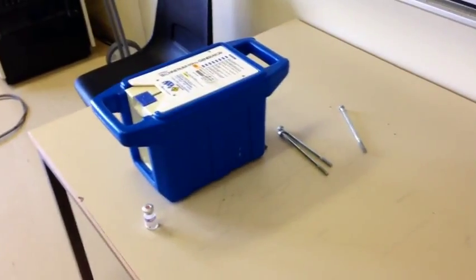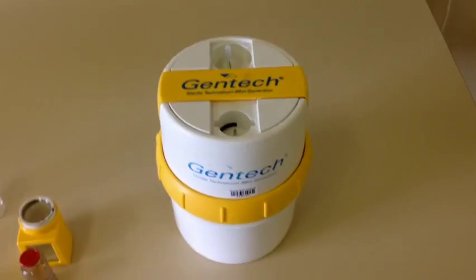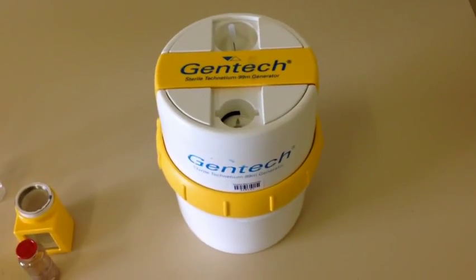So it's not really new, but it's just replaced this redundant wet generator over here. So you would have seen how the wet generator works in the previous video.